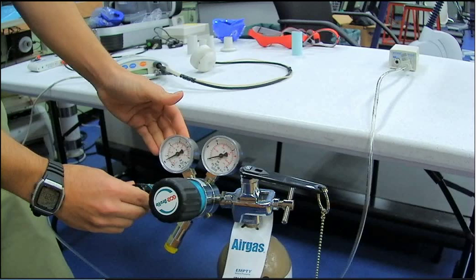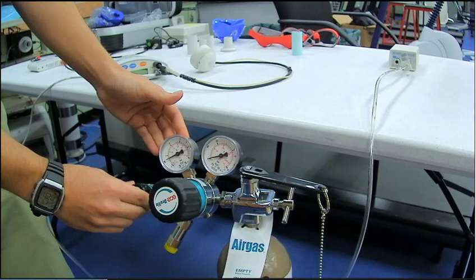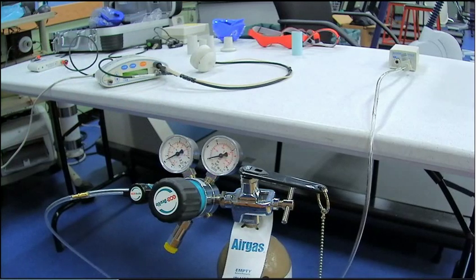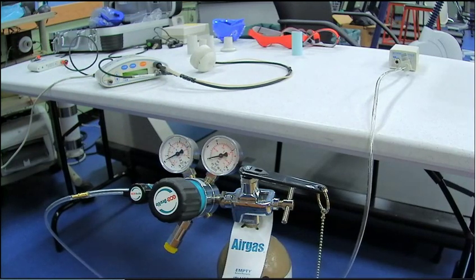So just keep that in mind every time you have to do this multiple times. The PSI will stay the same. Sometimes it will change out of a range you don't want it to be in. Just keep all that in mind.